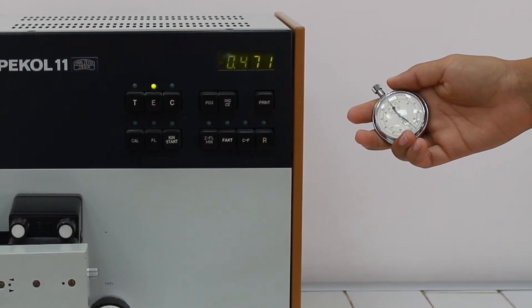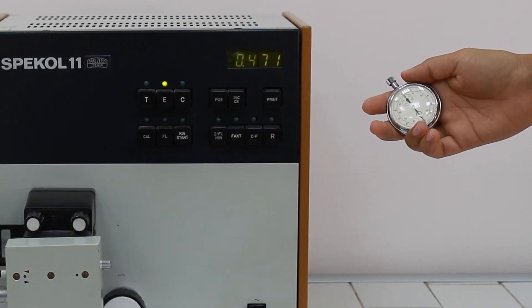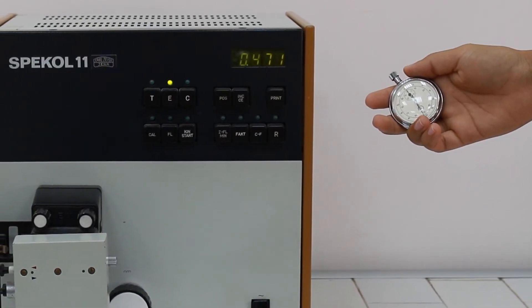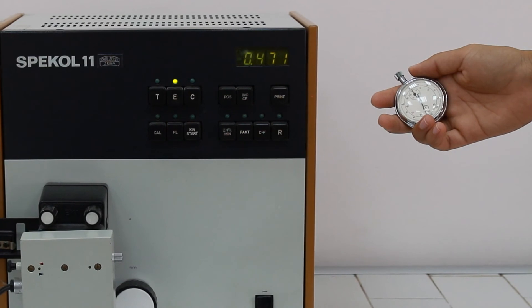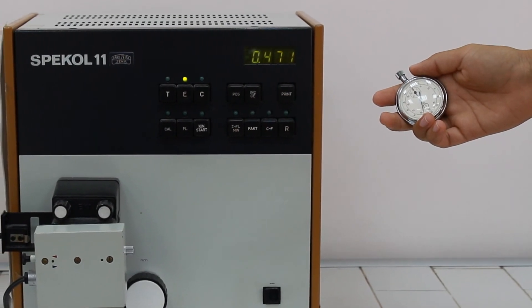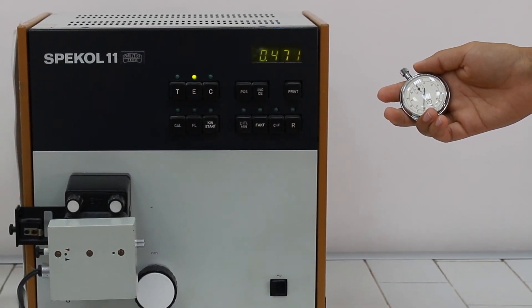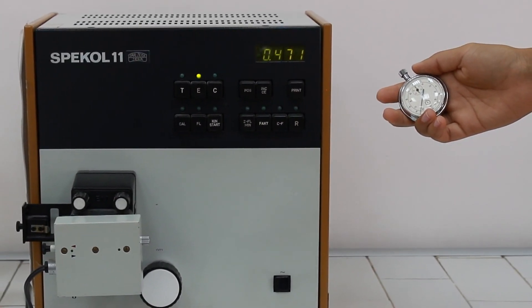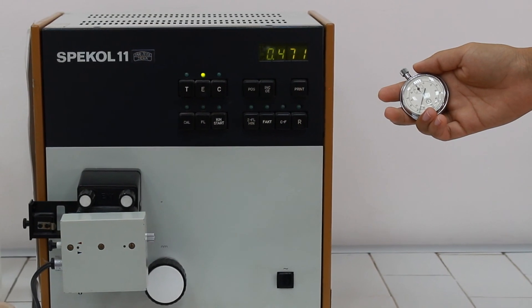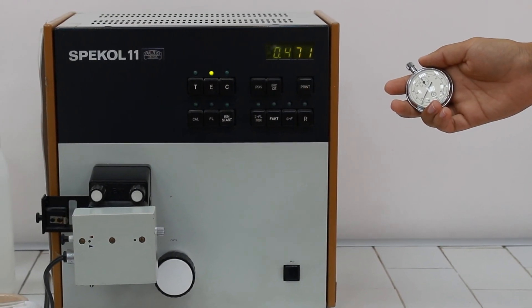During these enzymatic and indicator reactions, NADH coenzyme is produced as a result of these reactions, so we should follow the increase of the absorbance.